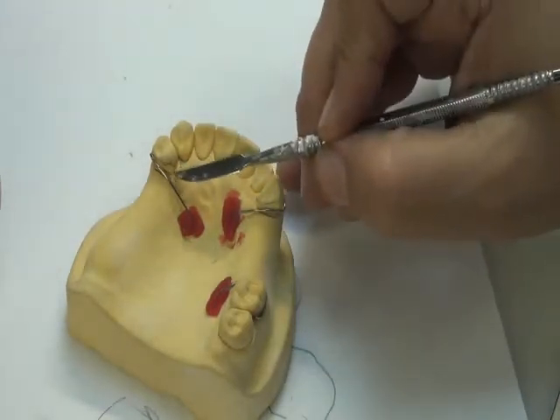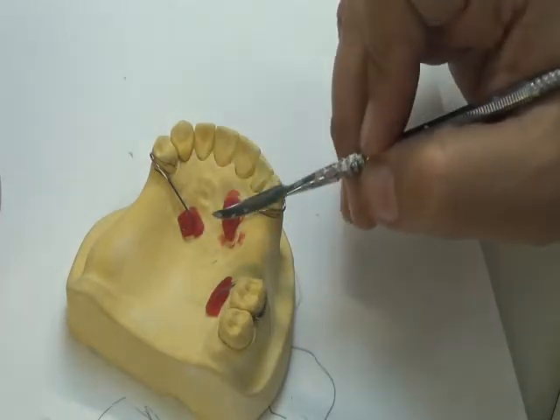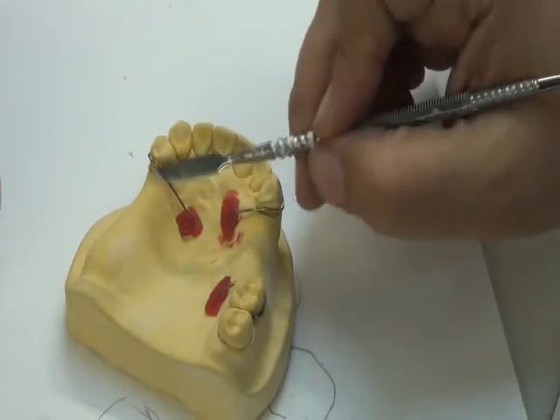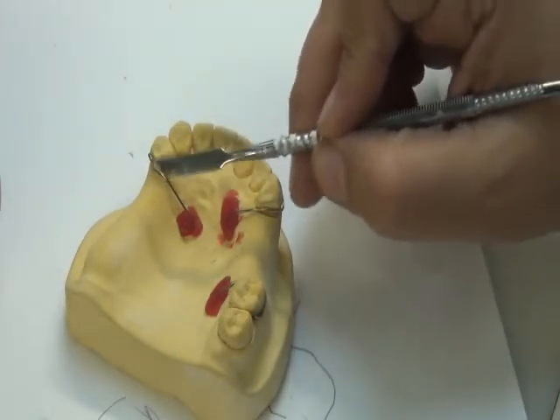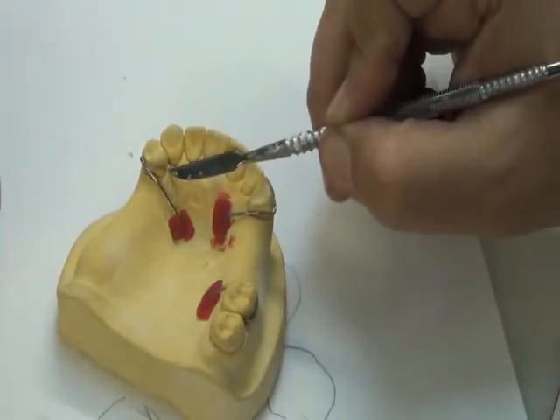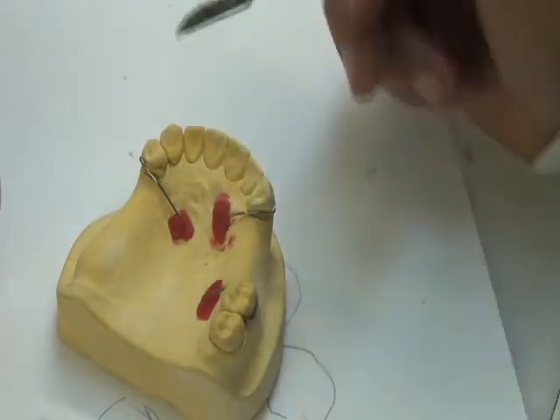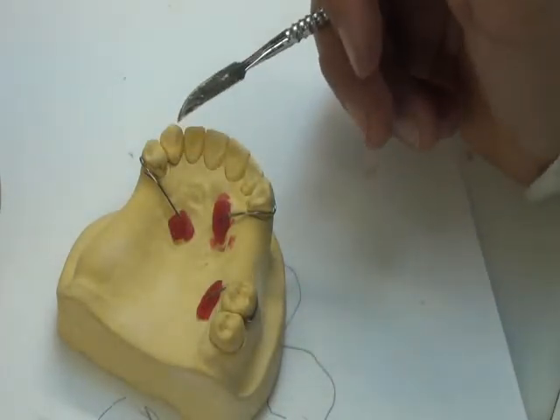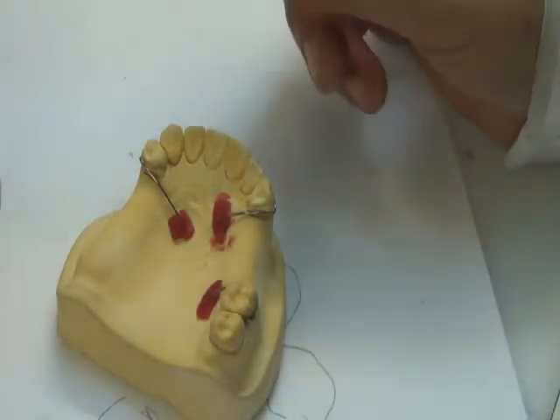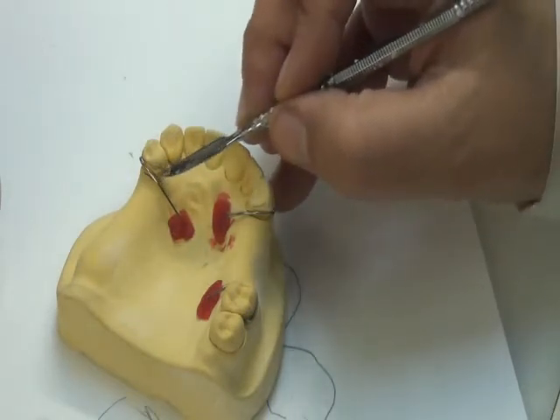If the acrylic comes in touch with the marginal gingiva, which is very delicate, and the acrylic is solid, no matter how much we make it stable, there is still some minor movement while the patient is using this RPD. When the patient is biting on the teeth, there is some minor movement. This minor movement will keep impinging and pushing the gingiva, and this will cause a trauma, and in the long term, what we call gingival recession. Recession meaning going down. The gingiva goes away from the trauma. So we don't want this harmful effect on the abutment teeth, so this is why we block this undercut.